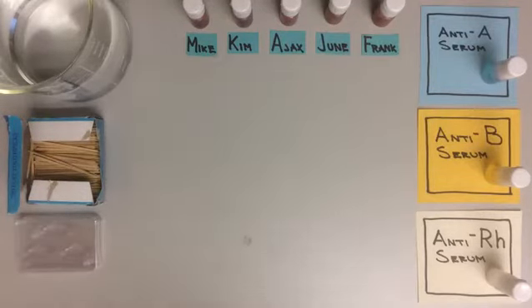In this video, we will apply some of the knowledge that we have gained about blood typing in our earlier theory-based video. Let's have a look at a practical application. So here we are first going to define one individual's blood type, and then we are going to try to find him a good donor match. Why don't we get started right away?